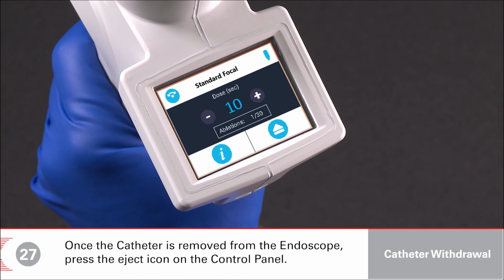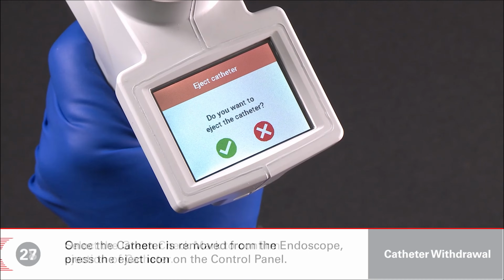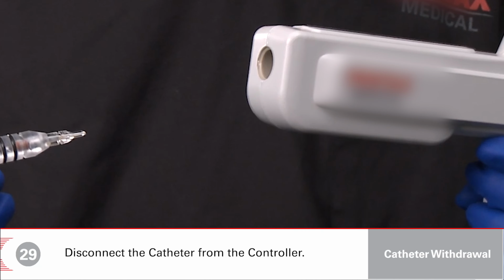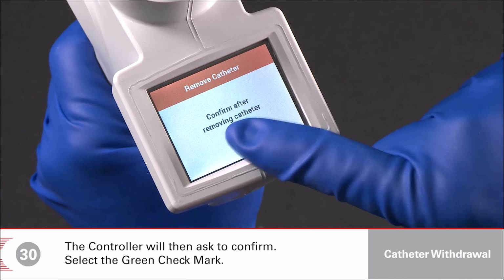Once the catheter is removed from the endoscope, press the Eject icon on the control panel. Select the green check mark to confirm ejection of catheter. Disconnect the catheter from the controller. The controller will then ask to confirm. Select the green check mark.